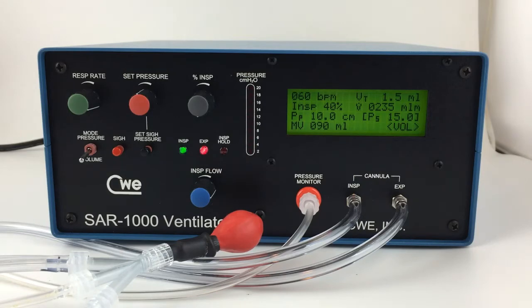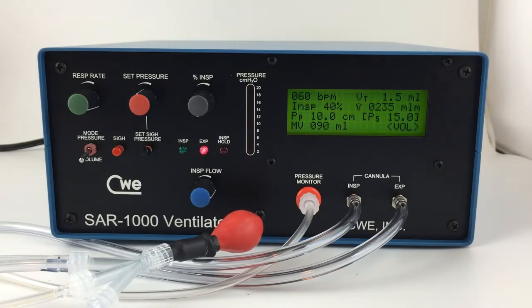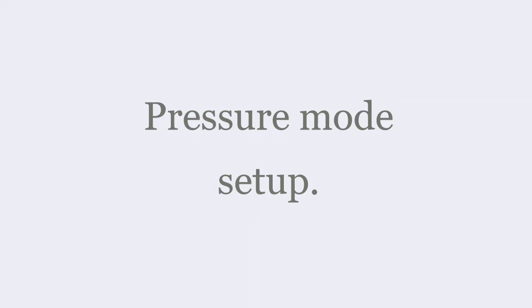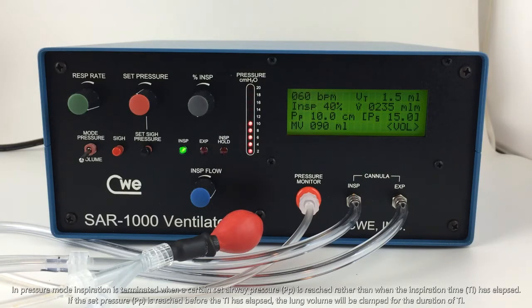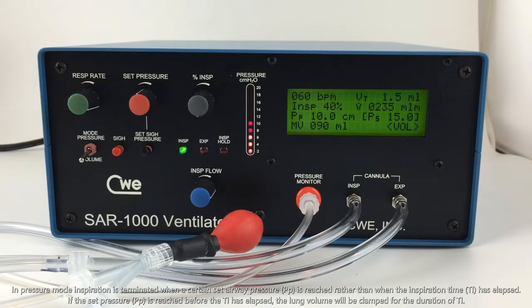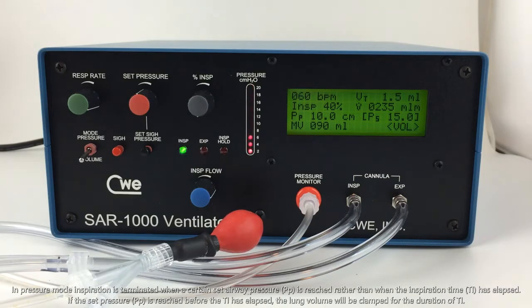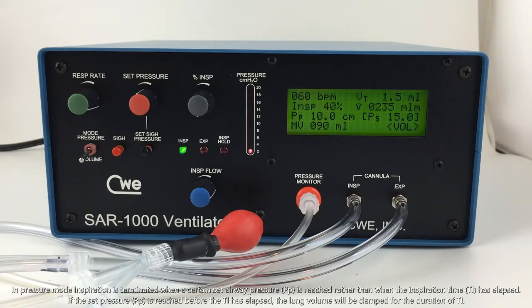This completes a brief explanation of volume mode. Now on to pressure mode. In pressure mode, inspiratory flow stops when the user-set airway pressure is reached, rather than when the inspiration time has elapsed. If the inspiration time has not already elapsed, lung volume will be clamped at its present value and released at the end of the inspiratory time.